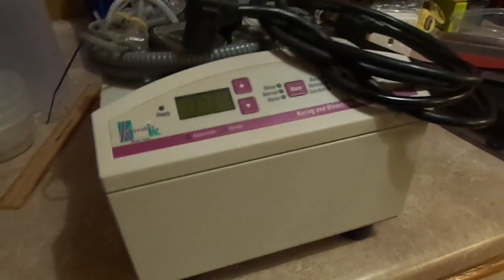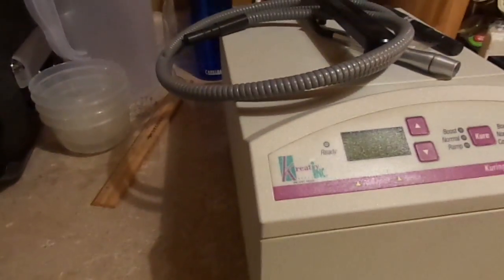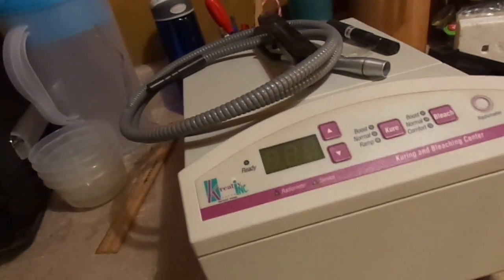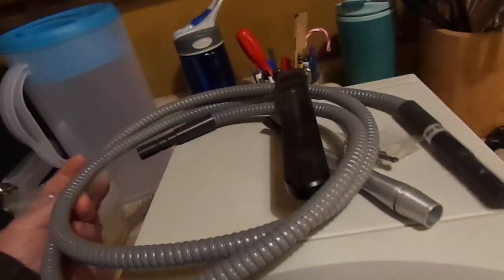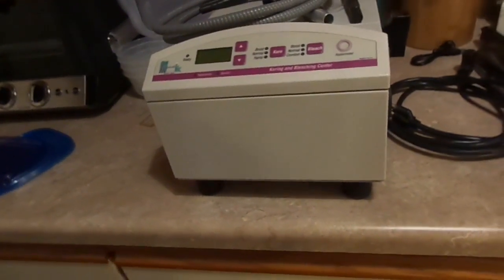I've got this little doohickey — I just picked this up today. It took me a while to figure out what it was, but now that I know what it is, I'm intrigued. Because I've actually had one of these used on me before. What we have here is a UV curing light used in the dental business. This is actually a piece of dental equipment.